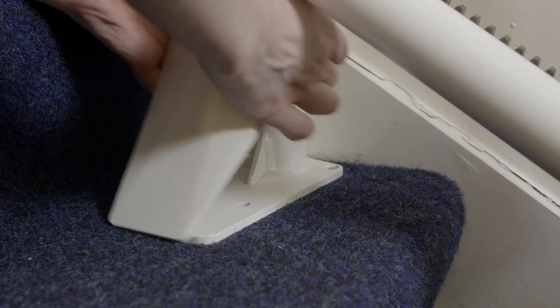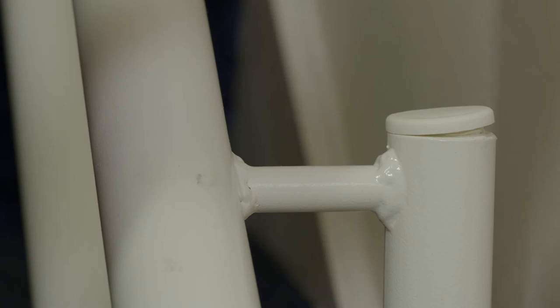Finally, add the finishing touches by clearing up your cables using trunking and adding any rail furniture, such as leg base covers and leg caps.